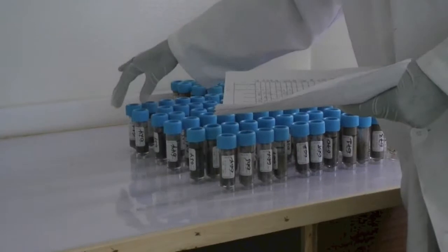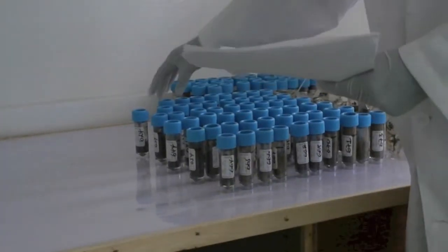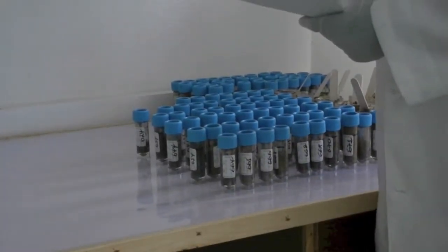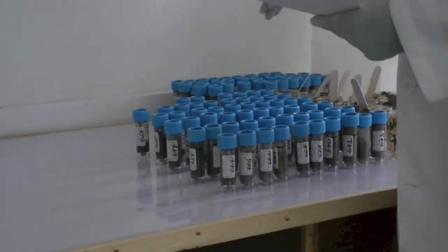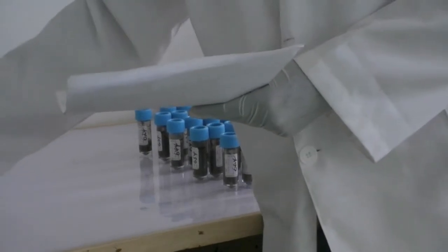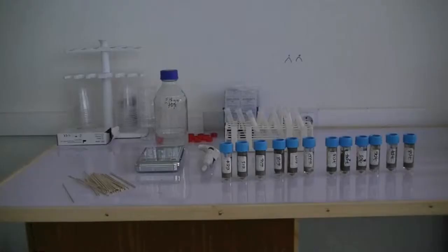2. Procedure. We only want to preserve stool samples that contain helminth eggs. After this first selection, it is still possible that we are unable to preserve and store all these samples. Therefore, it is recommended that we make a new selection, either randomly or based on the fecal egg counts. Overall, the likelihood of having positive PCR results increases in function of increasing fecal egg counts. In this example, we have randomly selected 12 out of 24 stool samples that contain eggs of soil-transmitted helminths.